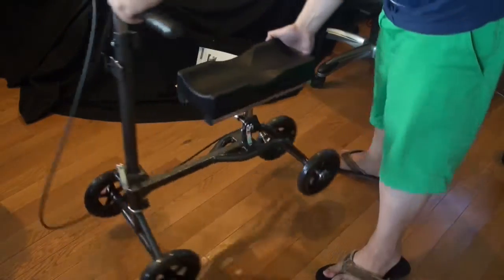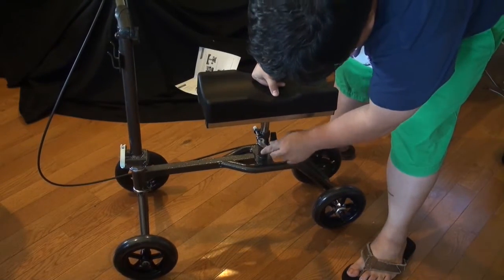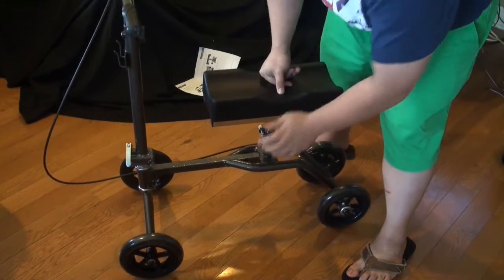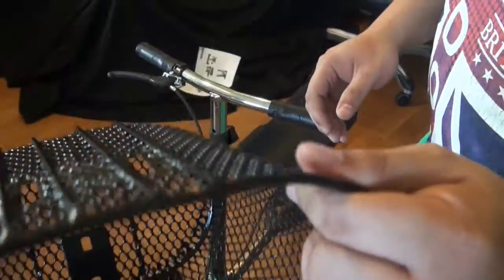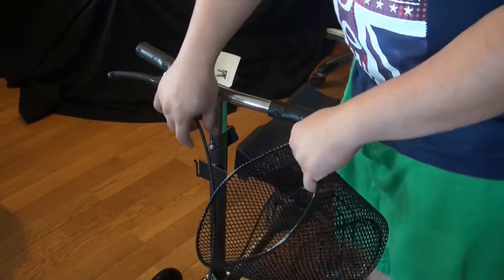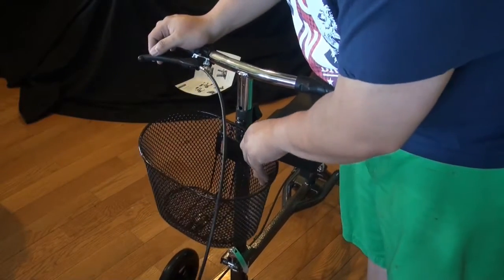There's also going to be that metal thing again, and you just need to press that down tight and secure. Last, you're going to need to put your basket. There are just latches — hooks — and you press your basket down there and you're ready to go.